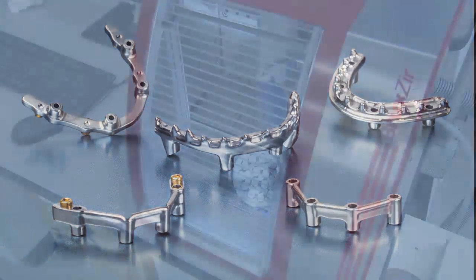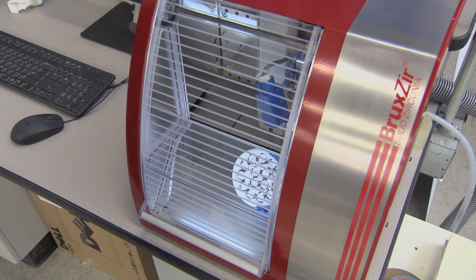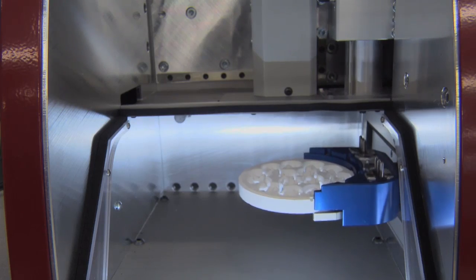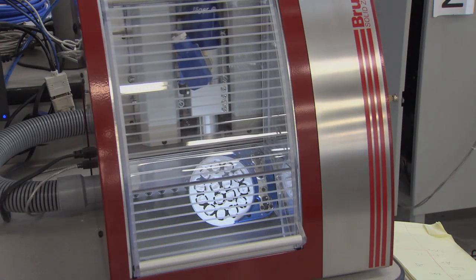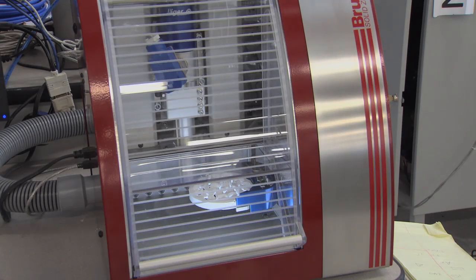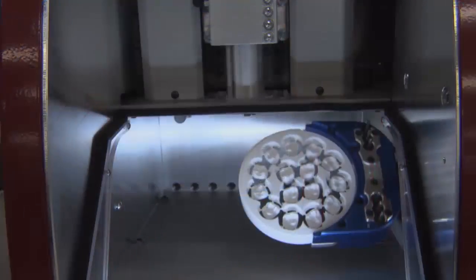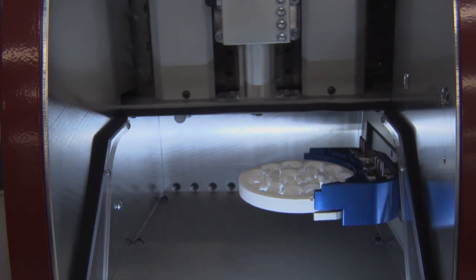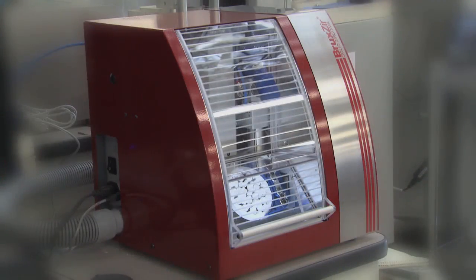For most laboratories, the 4-axis machine can be purchased with confidence. With quality software that properly orients the digital prosthesis to the milling machine, a 4-axis machine will manufacture high-quality prostheses for lower up-front and continuing costs than a 5-axis mill.